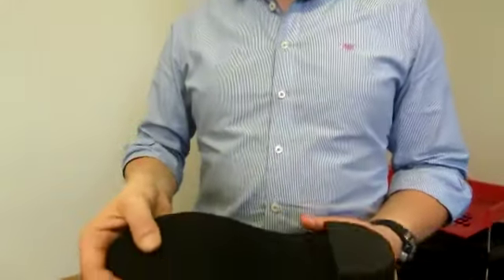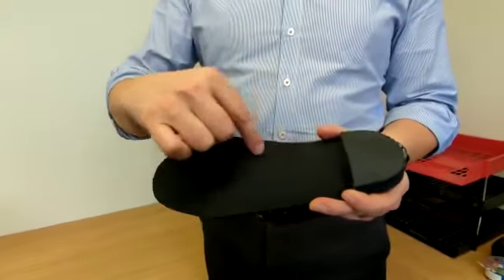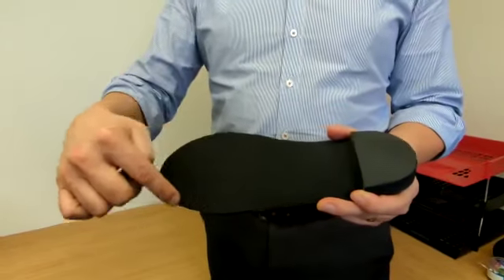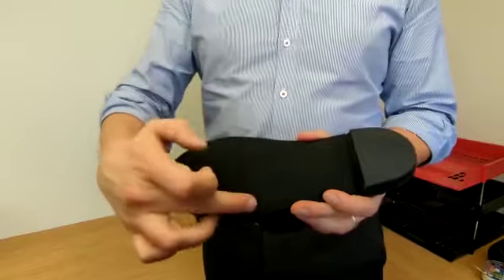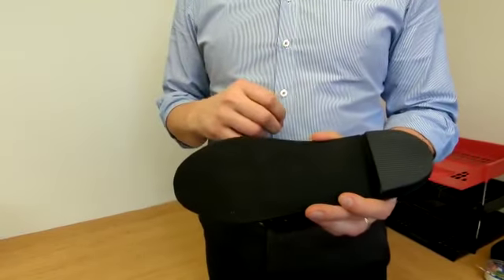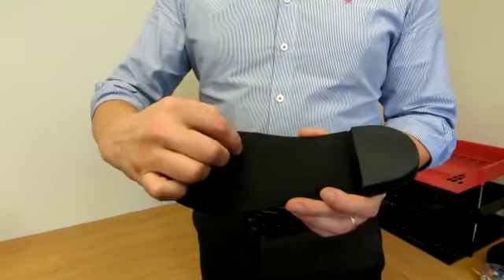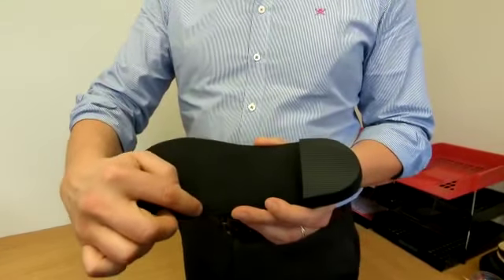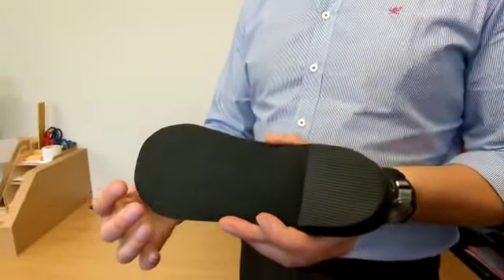The next thing to look for — if we turn it over — there's a point where the firm plastic shell ends and the softer material of the top carries on. That's probably the weakest point of an insole. Looking along there, if you start seeing tears or fraying or too much damage to that area, it's a risk that the front might tear away from the back.